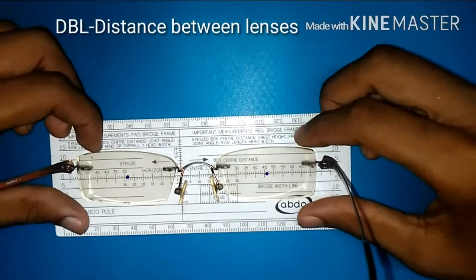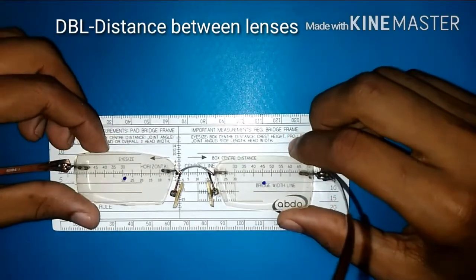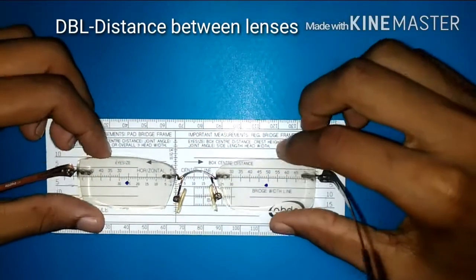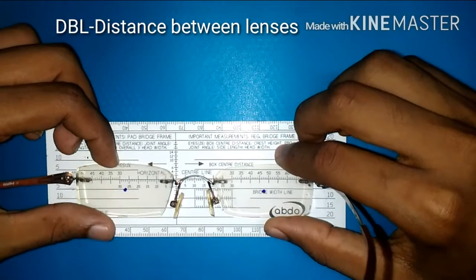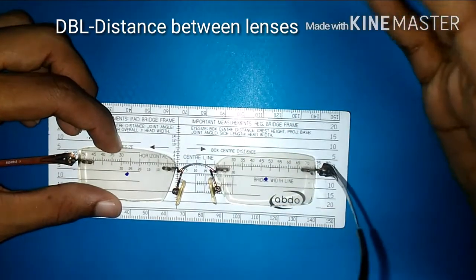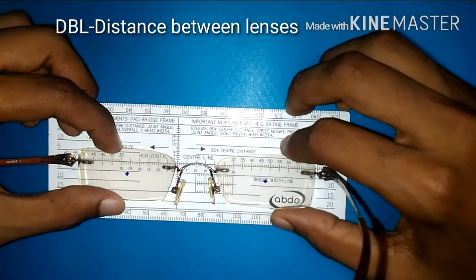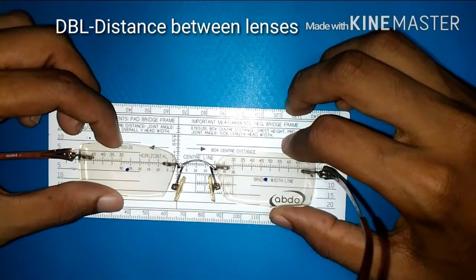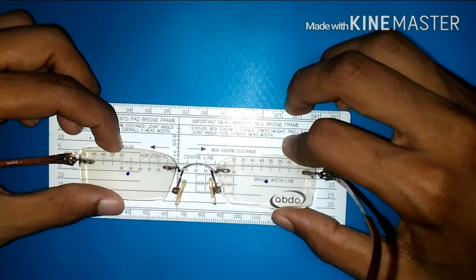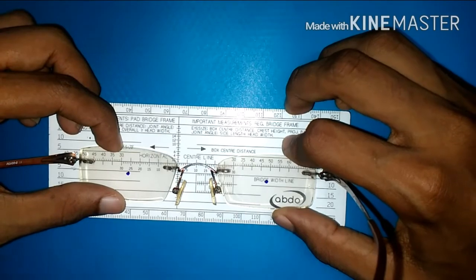The distance between lenses is the minimum distance between two lenses. Place one side of the lens at zero and try to measure the minimum distance between the lenses.